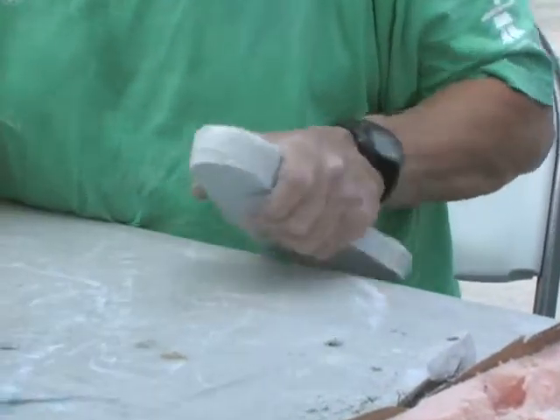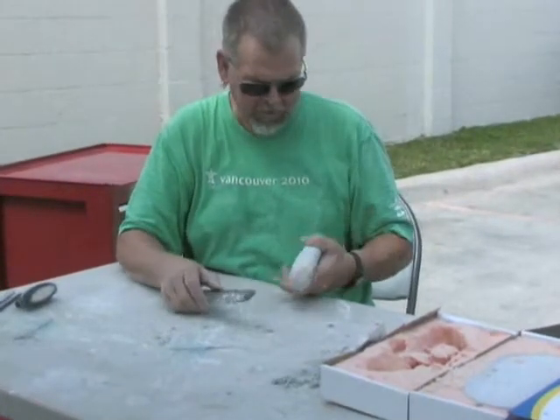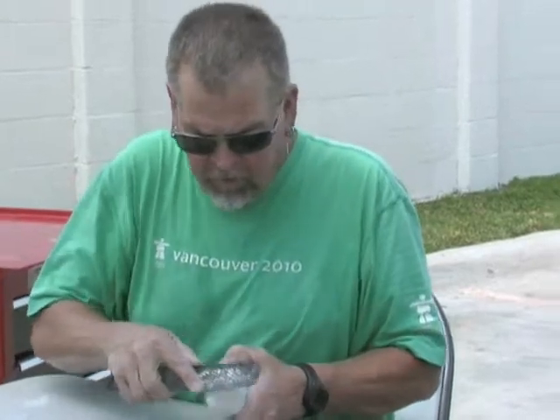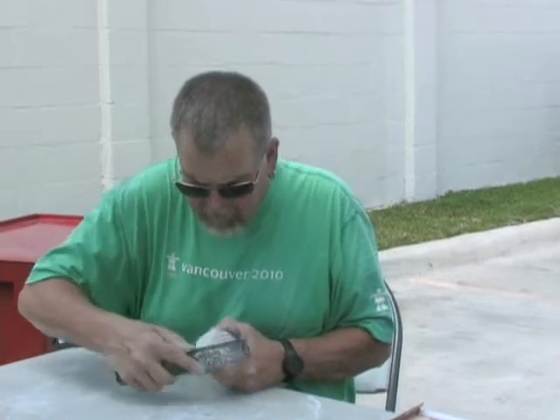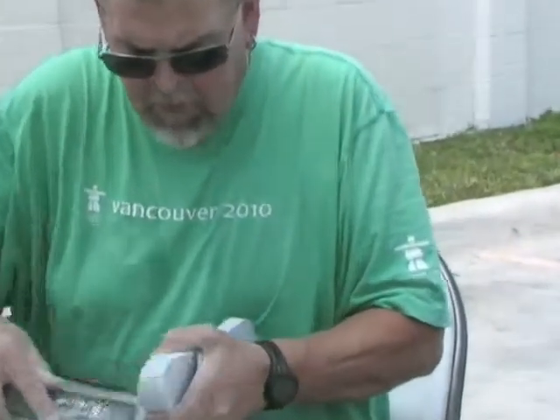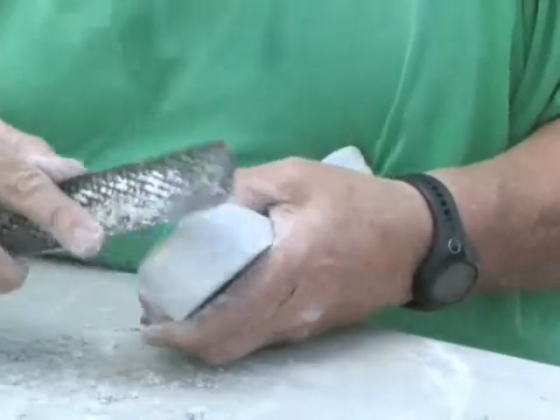Around the heel you'll notice I don't work with the cast up here. Years of doing this, I have a little bursitis in the shoulder, so I just hold it here and work with it on the table so I'm not forcing this arm up. I'll go around the heel getting that just like I've done the medial and lateral, but I have to keep moving the file in a round manner so I don't put flat spots on here — flat spots will cause blisters.